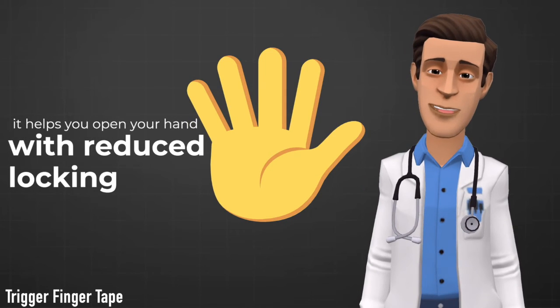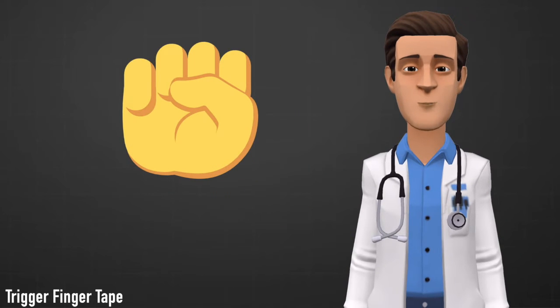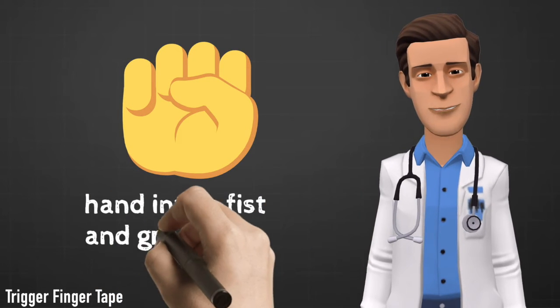Like a brace, it helps you open your hand with reduced locking, but our tape also allows you to easily close your hand into a fist and grip things normally.